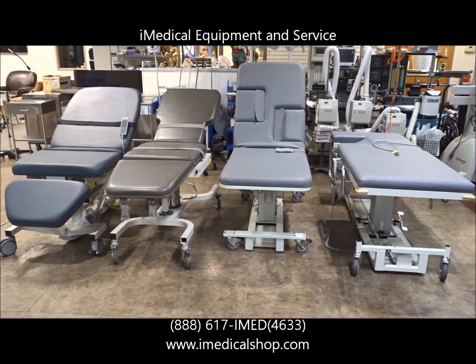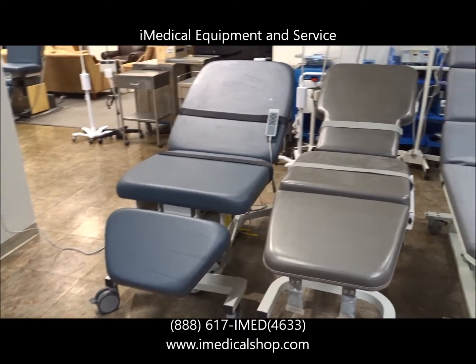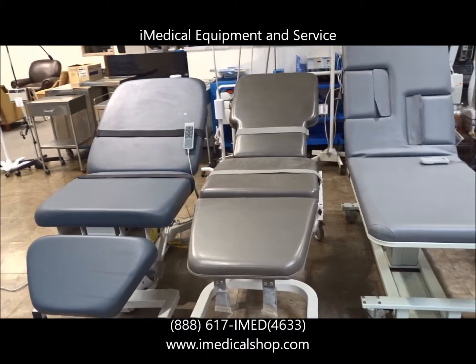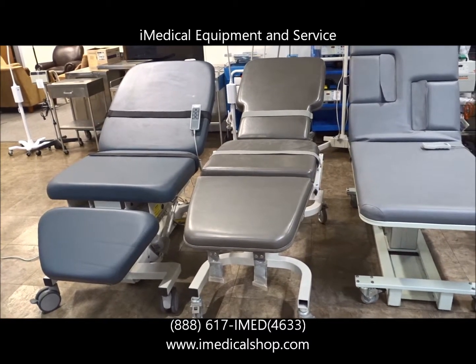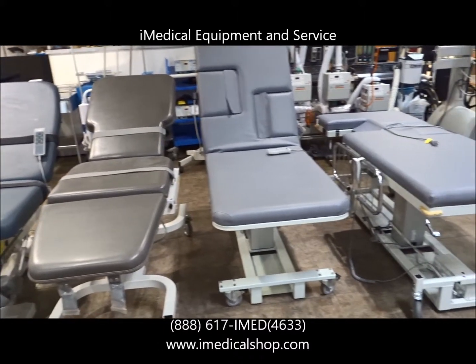The table on the far left is a Biodex table. This is one of the newer Biodex models — an Ultra Position Pro — and then one of the older models right next to it, which is still fully functional. It's going to be very cost-effective for a new practice if you don't use ultrasound equipment a lot, or if you want to get started without a lot of overhead or costs.